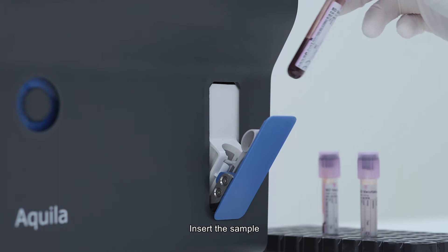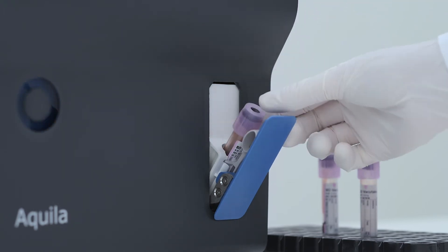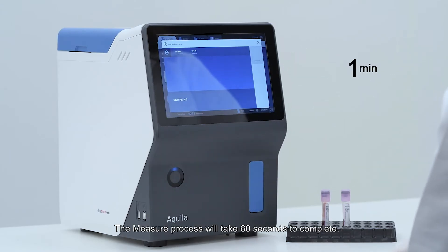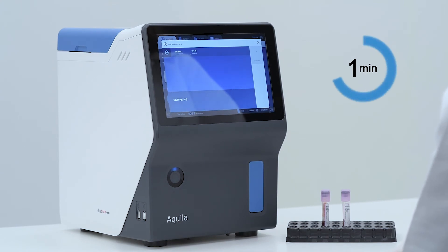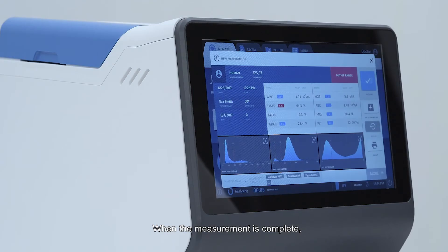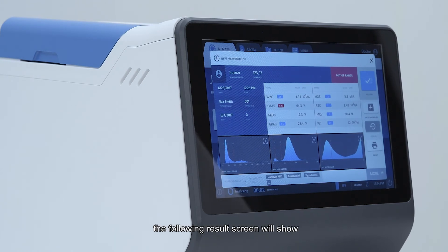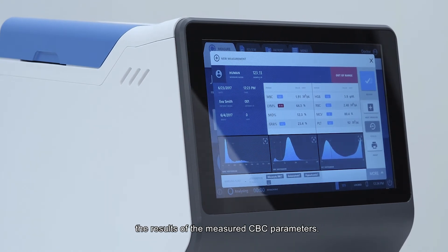Insert the sample and press measure. The measure process will take 60 seconds to complete. When the measurement is complete, the results screen will show the results of the measured CBC parameters.